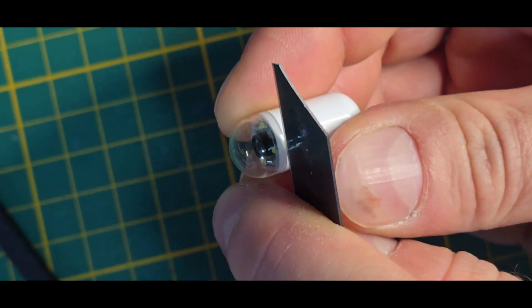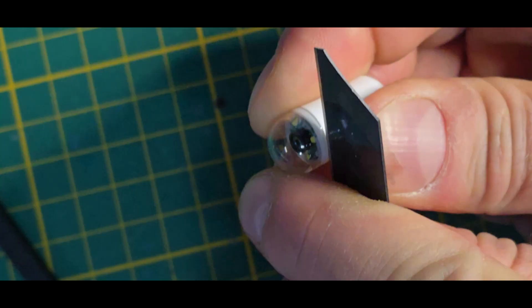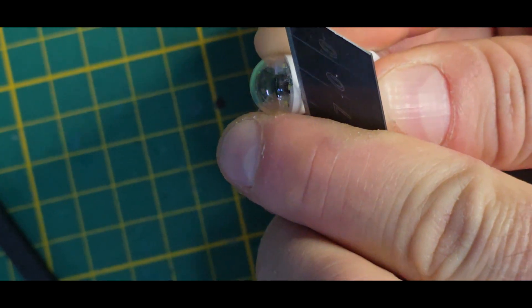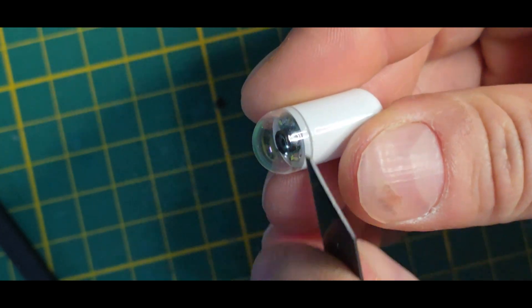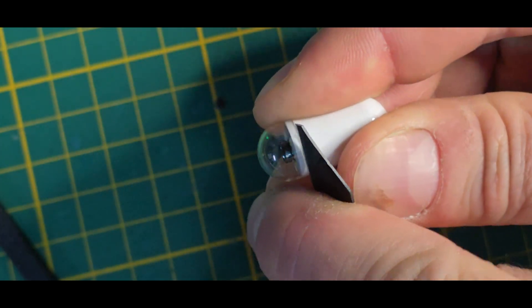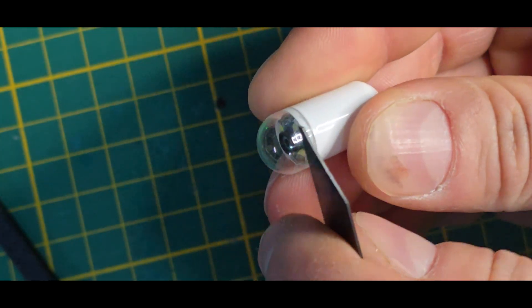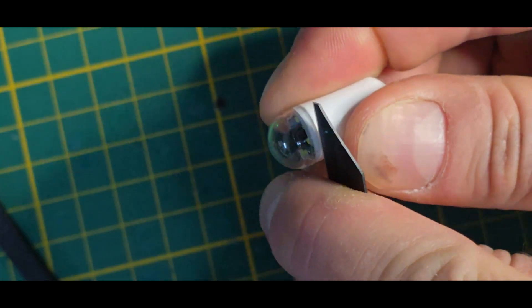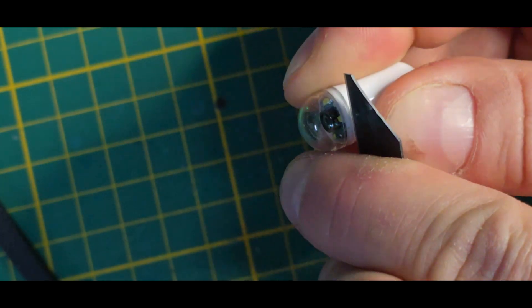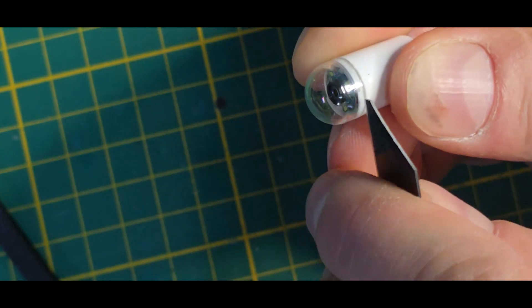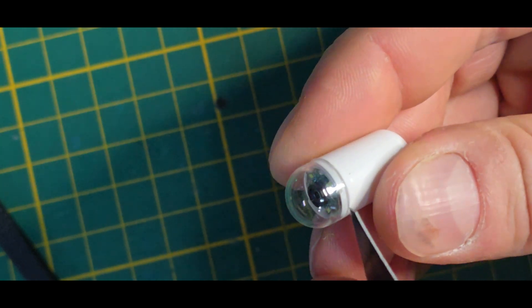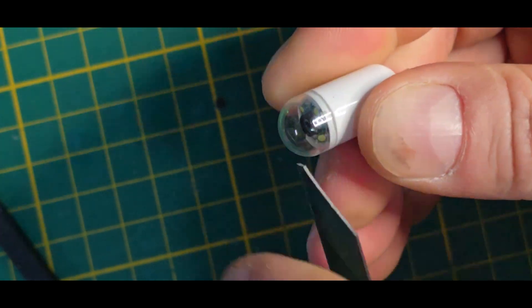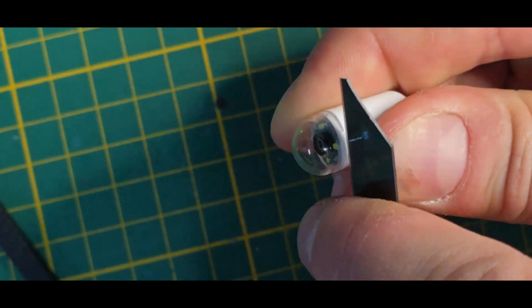So let's just try to feel how good we can get inside this way. It feels like it's opening a little bit already. It's making some crackling noise. So maybe if we go around a bit.